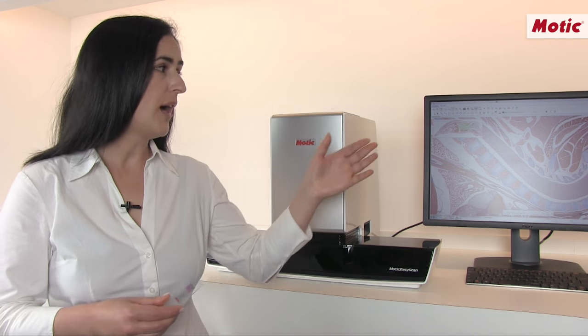The Motic EasyScan is the perfect solution to convert your classical glass slides into high-resolution digital data on a simple one-click procedure. These days the use of digital slide versions is the best approach to offer reliable, fast and efficient work in medical environments, but also for universities and teaching purposes.